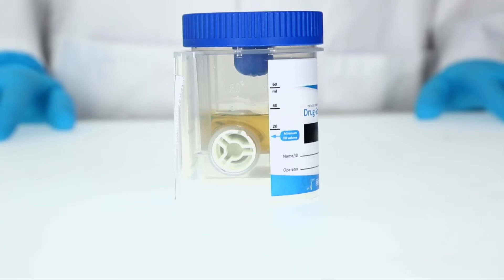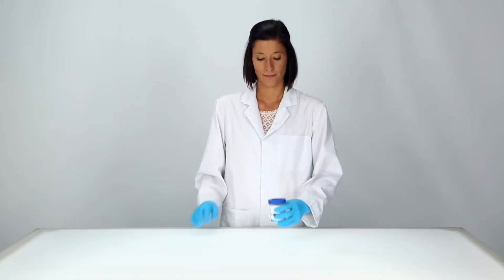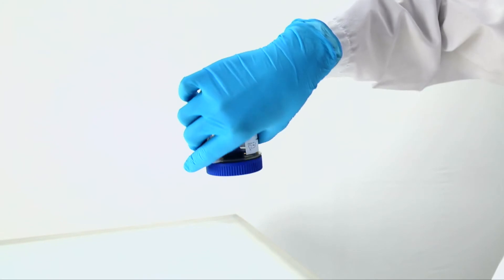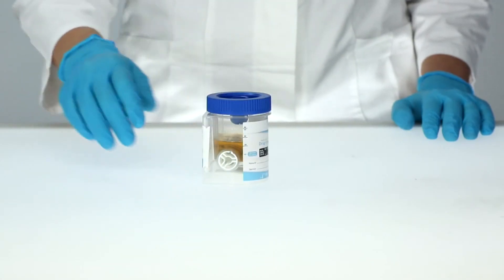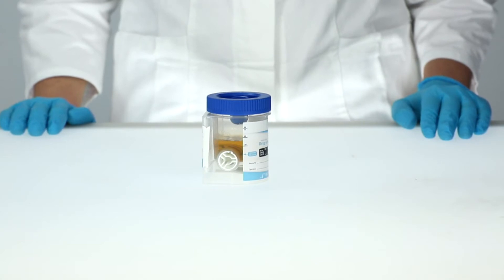The Nahl von Minden drug screen cup test is extremely hygienic, minimizing the risk of coming into contact with the sample. Sampling and testing can also take place at separate locations and times.